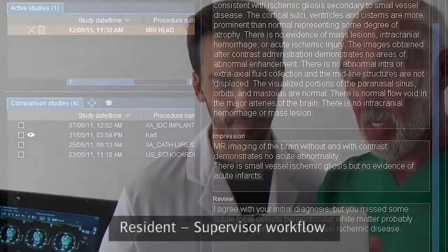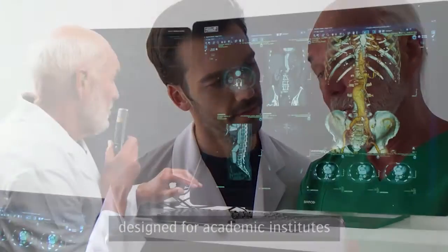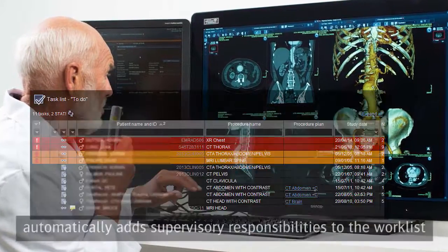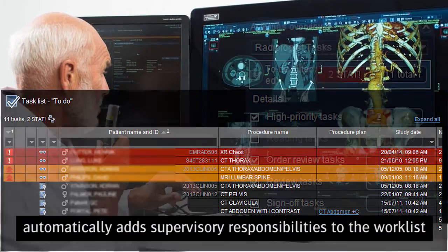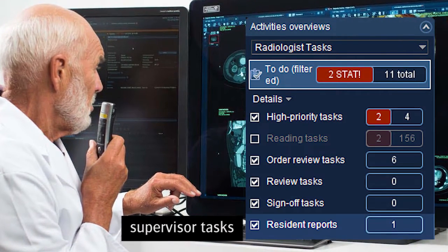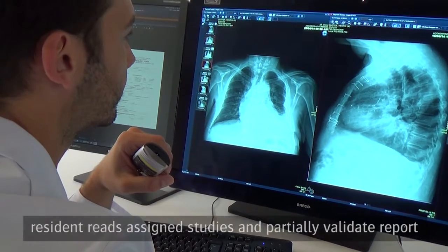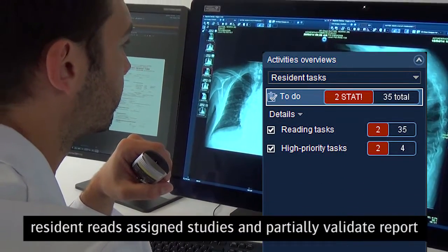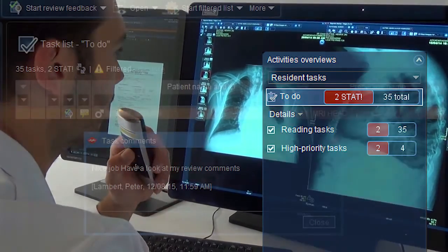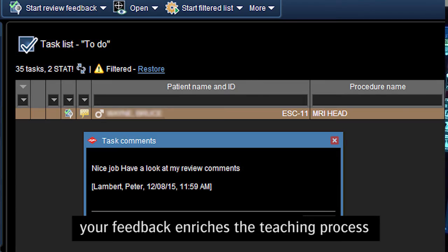The resident supervisor workflow in Agfa Healthcare's Enterprise Imaging for Radiology is designed for academic institutes. It automatically adds your supervisory responsibilities to the work list, giving you a clear overview of both your own tasks and your work as a supervisor. Meanwhile, the resident is empowered to read the assigned studies and partially validate the report. And you can assign reports back to the author with additional comments so your feedback enriches the teaching process.